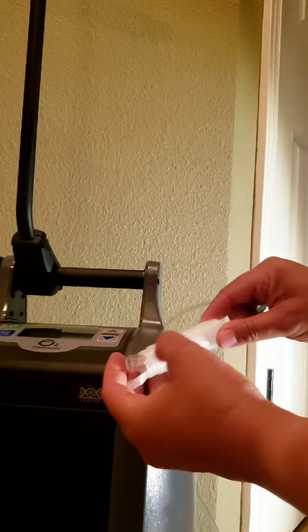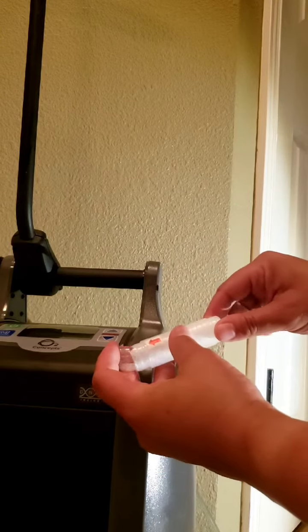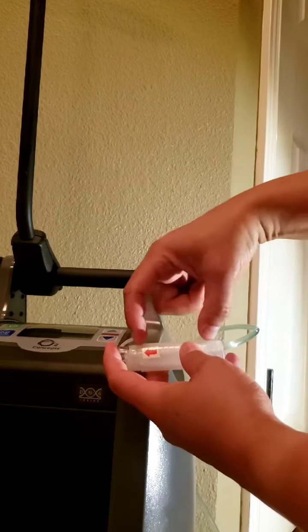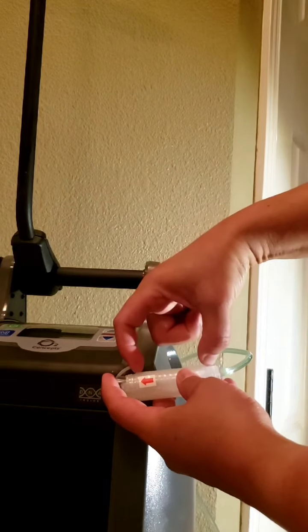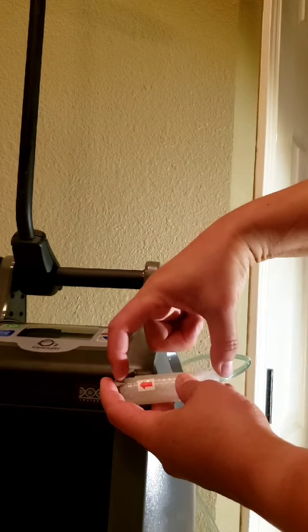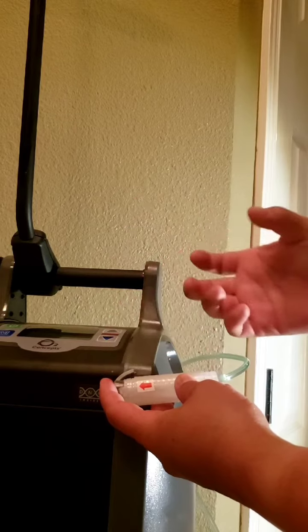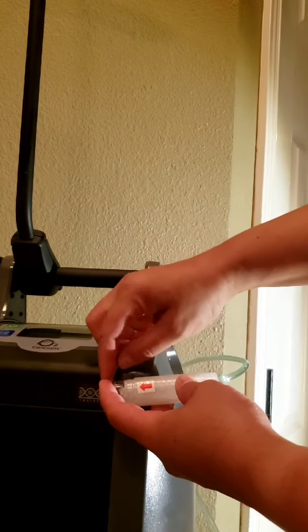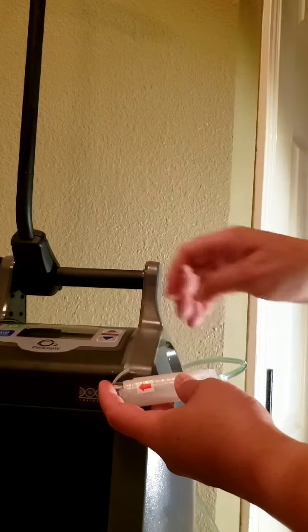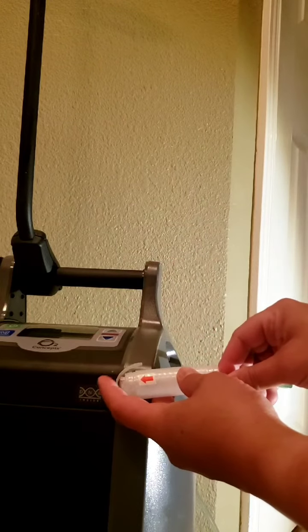And you're going to see that the actual silicone kink clear is only about this big. The rest of it is the inner plastic that holds it open so you can place your tubing inside.